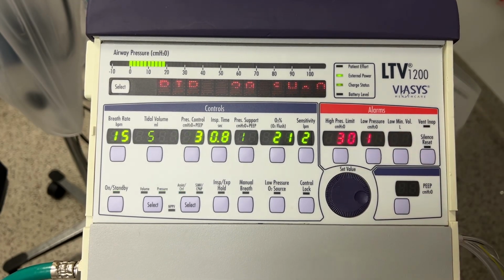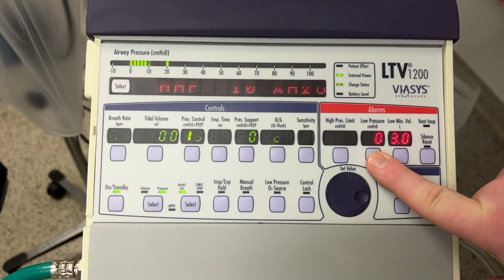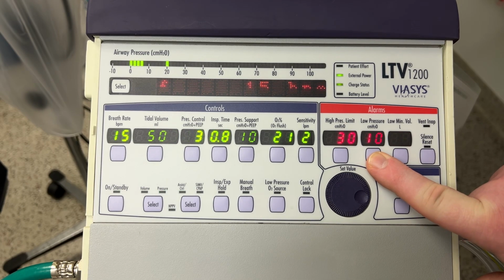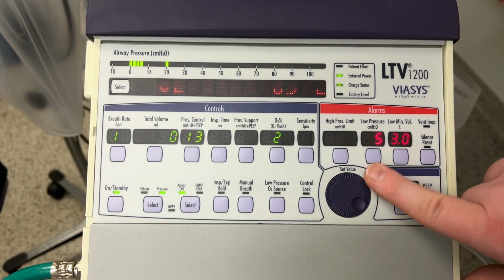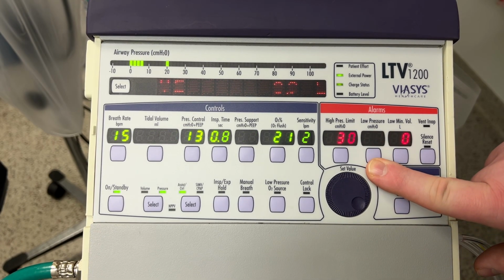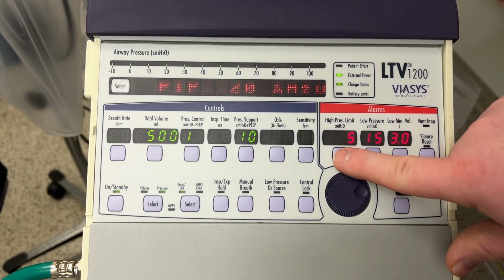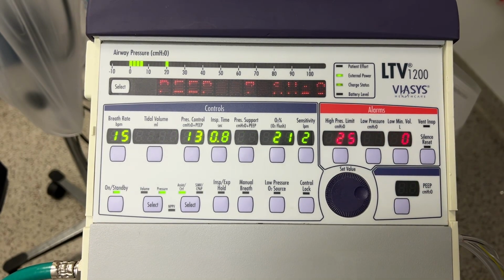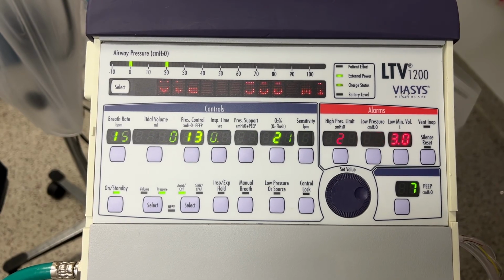There you can see I put my high pressure limit at 30, which is 10 above my current pressures of 20. And then I'm putting my low pressure at 10. Now this is one area where I was actually confused until I talked with Tony. I thought the pressure would have to be set below my PEEP level, but turns out it's below the combined pressure level. So currently my combined pressure level is set at 20. So there I just set my high pressure limit at 25 and low pressure at 15. Gives me 5 centimeters of water on either side for a buffer.